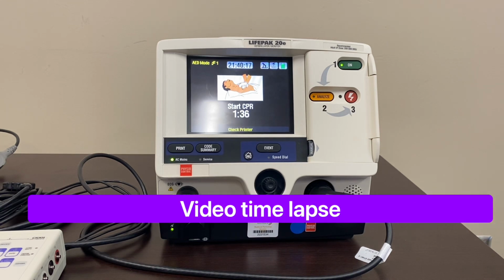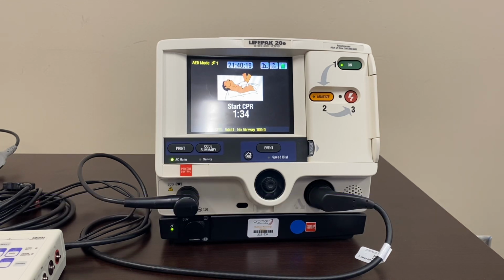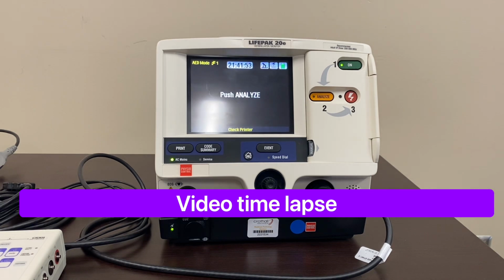So it's going to do continuous metronome with no voice prompts for the full 2 minutes, which is the basic change that we're trying to implement to prevent confusion in a code scenario. Push analyze.